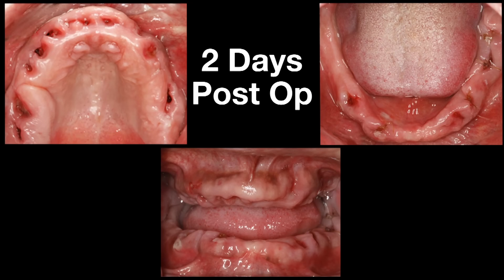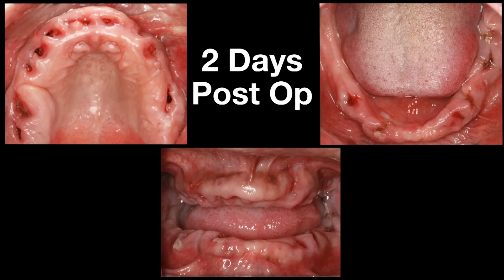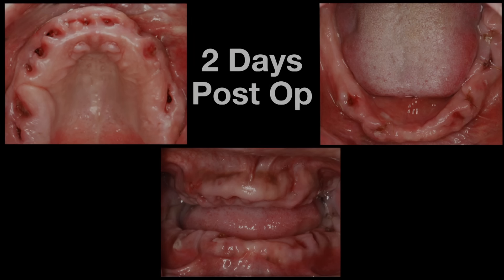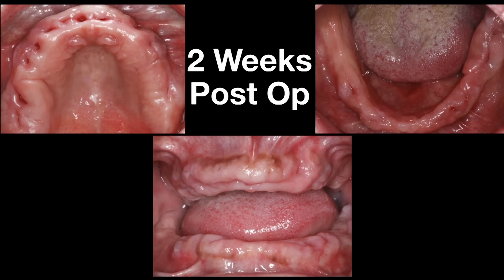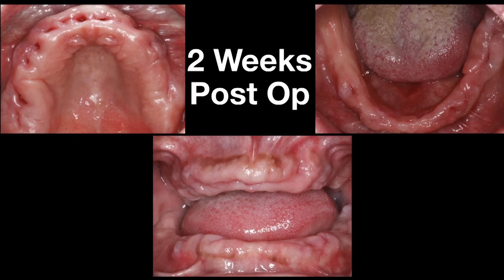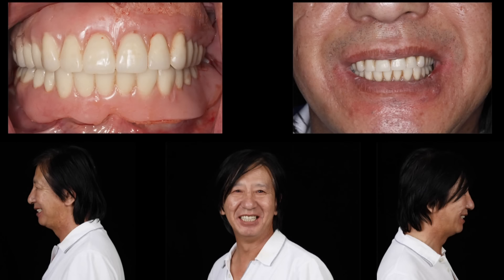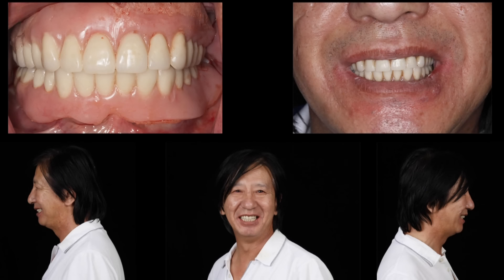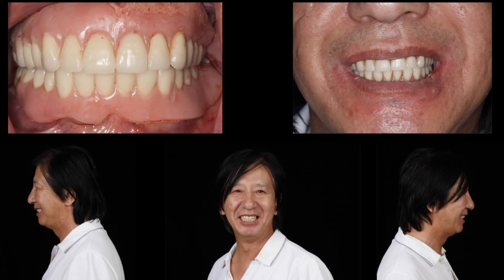It's also extremely fun to do this type of dentistry. The healing time was fairly quick for this patient — this is actually two days post-op, and here we have a two-week post-op picture showing the extraction sockets healing fairly well. So there you have it: a digital denture fabricated and processed analog, with the option of being able to mill the final denture. I hope that you enjoyed this presentation.